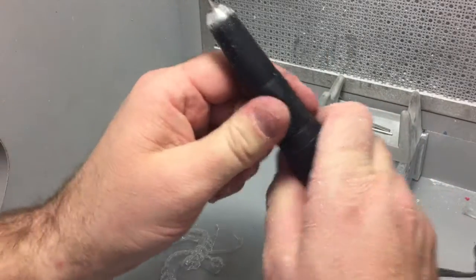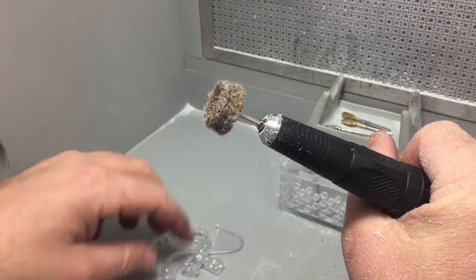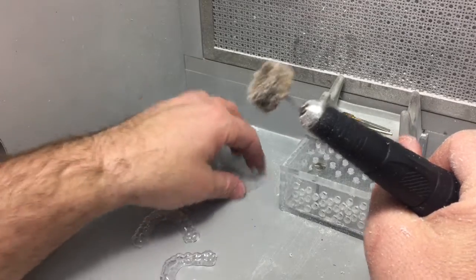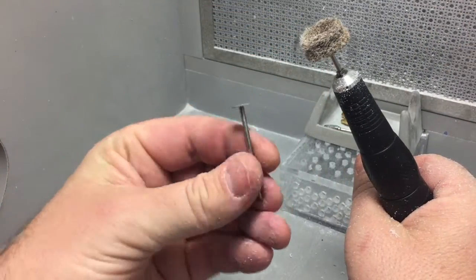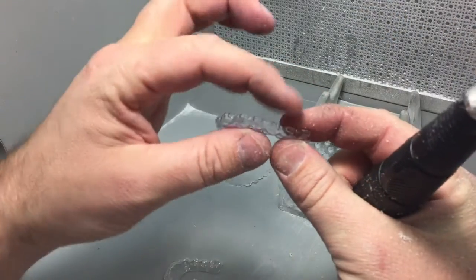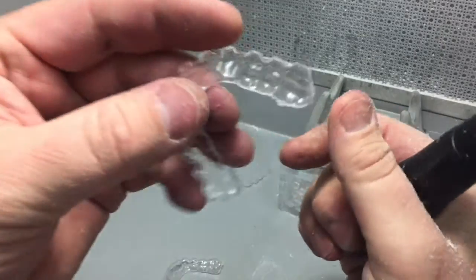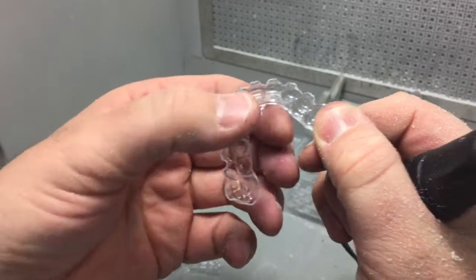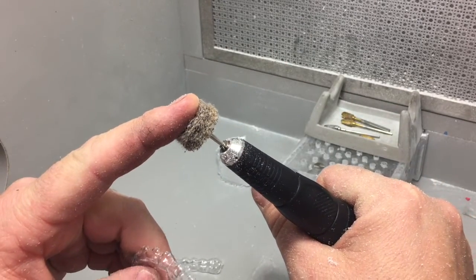We're going to switch to this rough buffing wheel and go all the way around it. The reason I use a brand new or sharp saw like this is because if you melt the Essex while you're cutting it along this edge, it's a lot harder to remove the little spurs and all that type of stuff. But if it cuts nicely, this tool makes it so much easier.